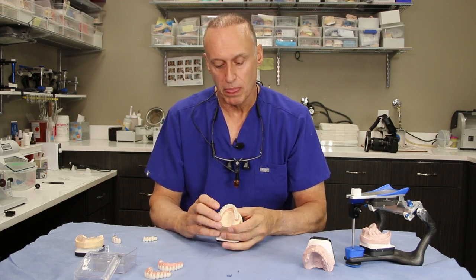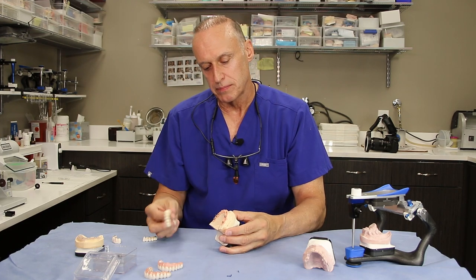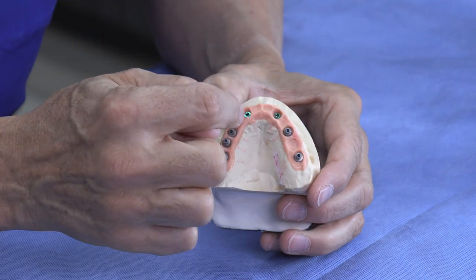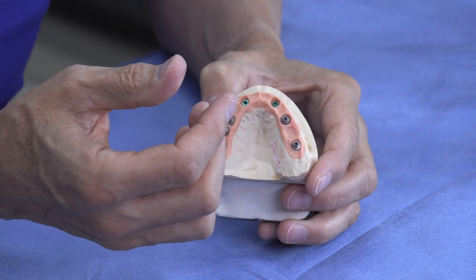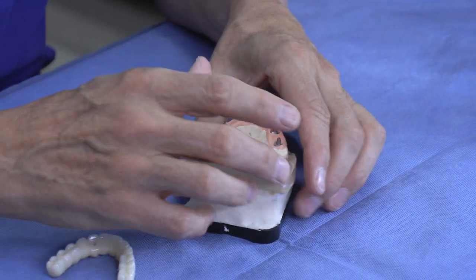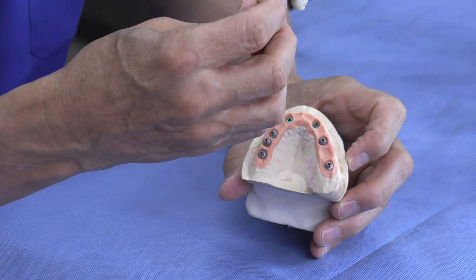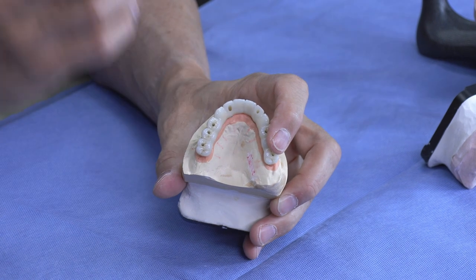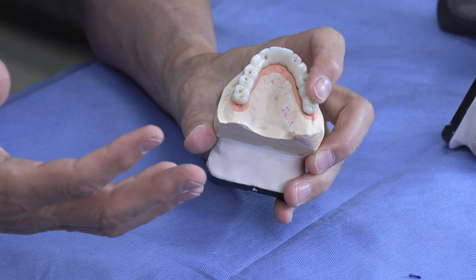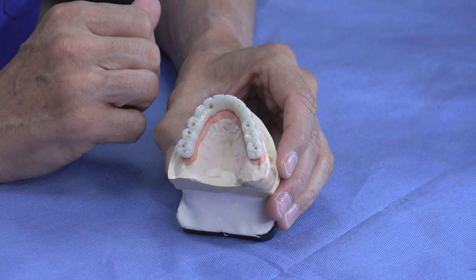This is done in the laboratory before the patient gets here, but I've taken this case a couple days early so I could use it to educate for this video. We use a different kind of abutment here — another selling point for implant bridges. These two front implants, because of bone volume, couldn't be placed so the screw holes would come through at this angle. There's a company out of Spain that makes what's called the dynamic abutment, which allows for slightly off implant angles to be corrected without using an angled abutment. It's a very clean transition between prosthesis, abutment, and implant — we can correct angles up to about 30 degrees. There really is no argument for angled abutments in 2022.